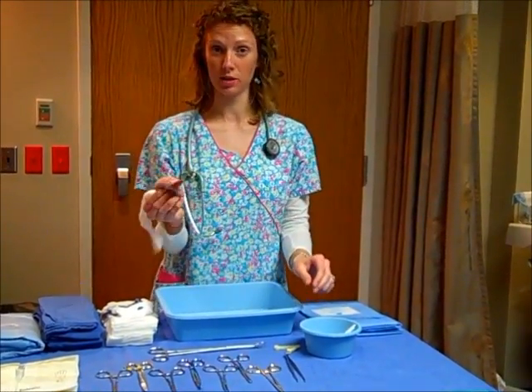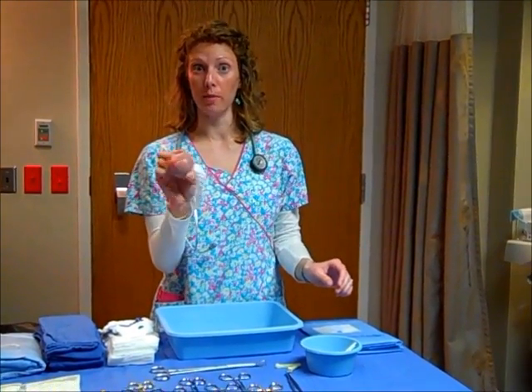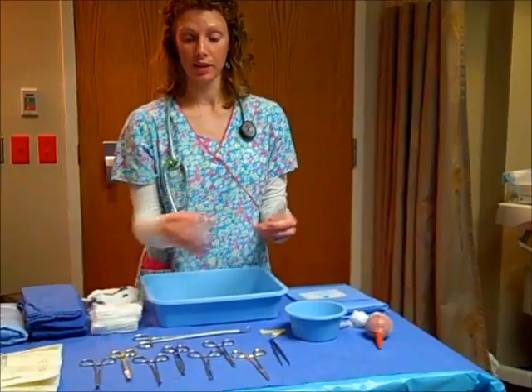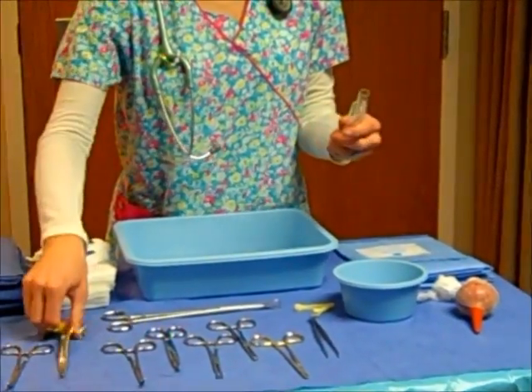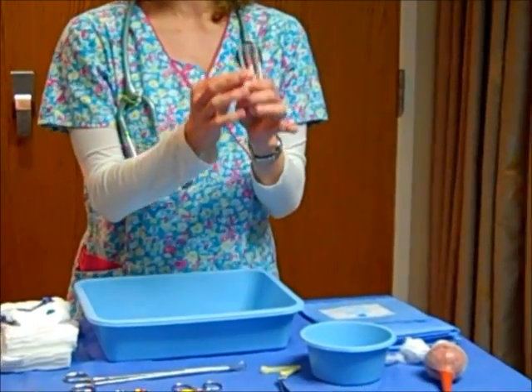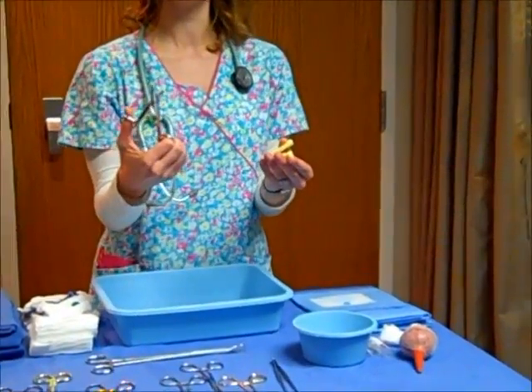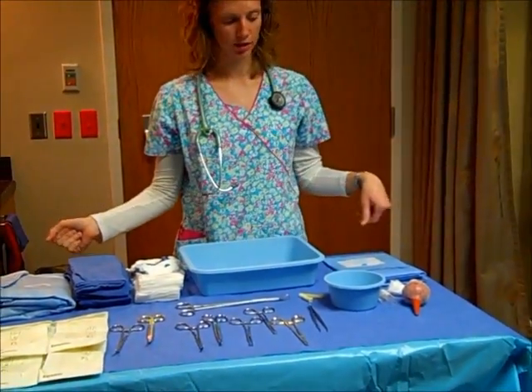Here's a bulb syringe. When the baby comes out, the head will come out, the provider will suction out the nose and the mouth. And then once the baby delivers, they let the cord pulsate for a few minutes, and then they're going to clamp and cut the umbilical cord, and then they'll collect cord blood, and they'll put it in here, and that'll get sent down to the lab. And then they'll have a cord clamp here, and they'll usually offer to let the father or whoever cut the cord. So this is just some of the common items that you'd see on a labor and delivery table.